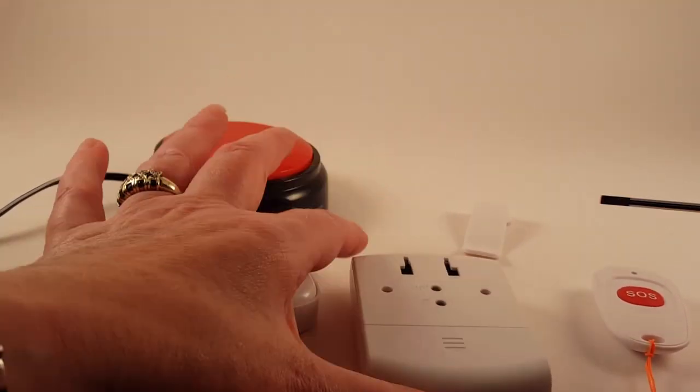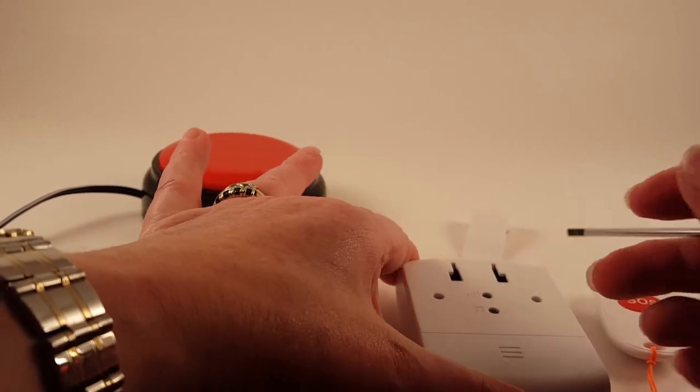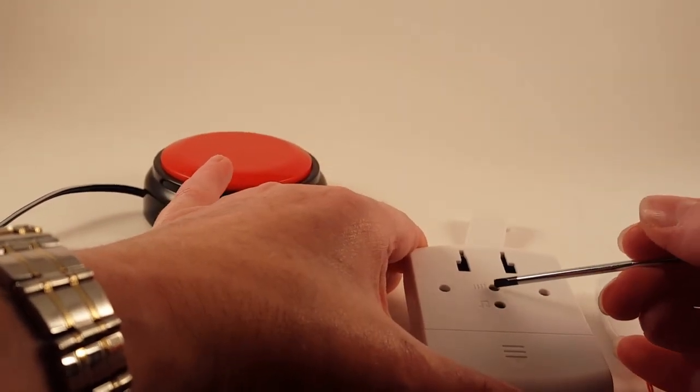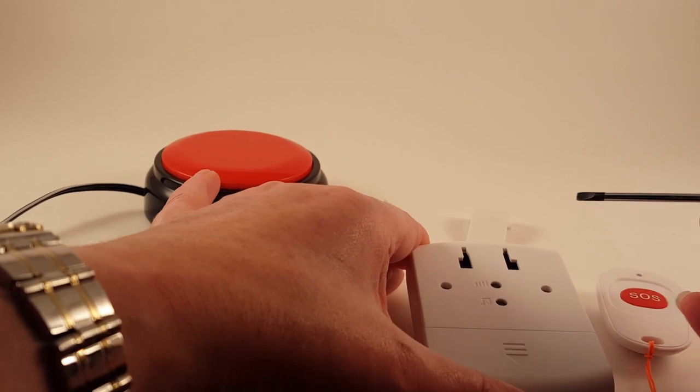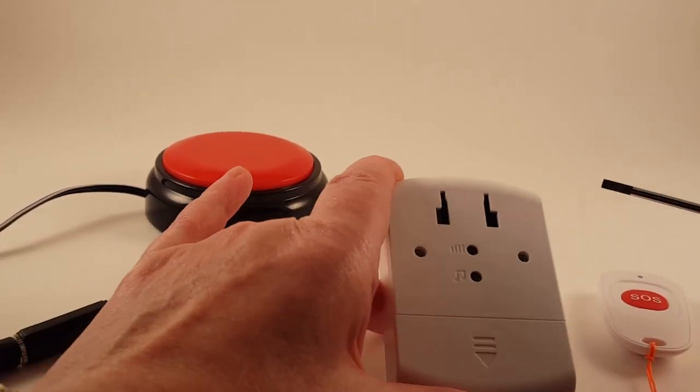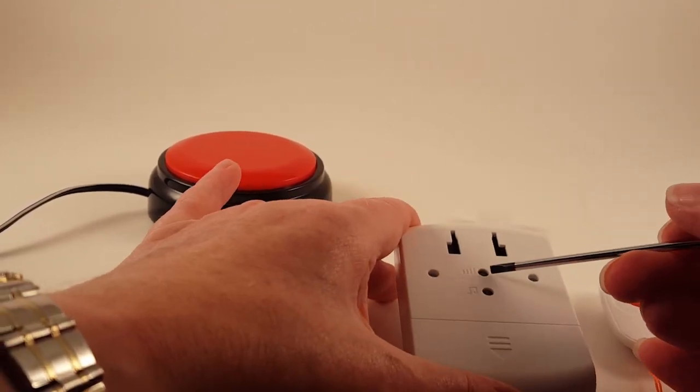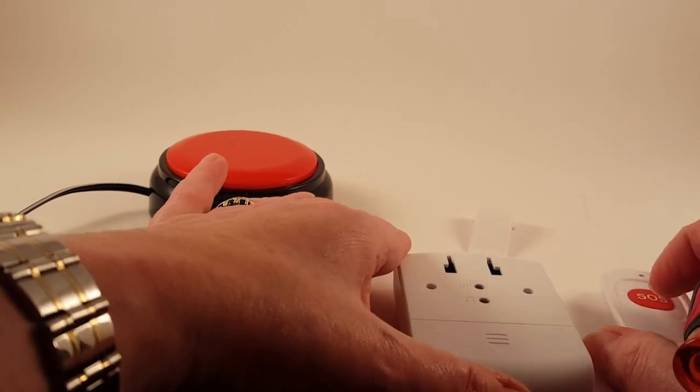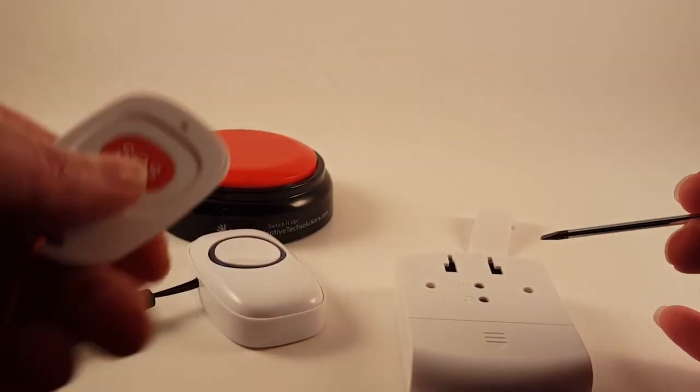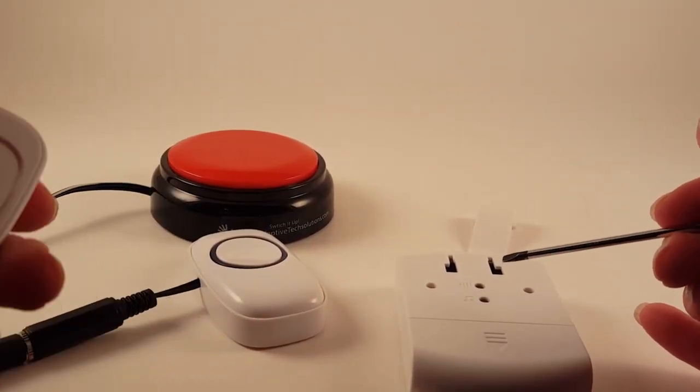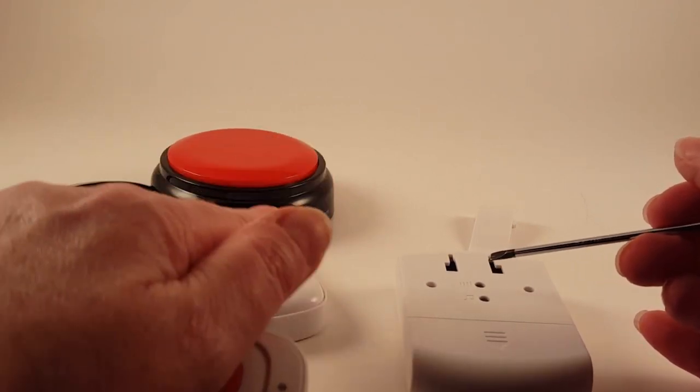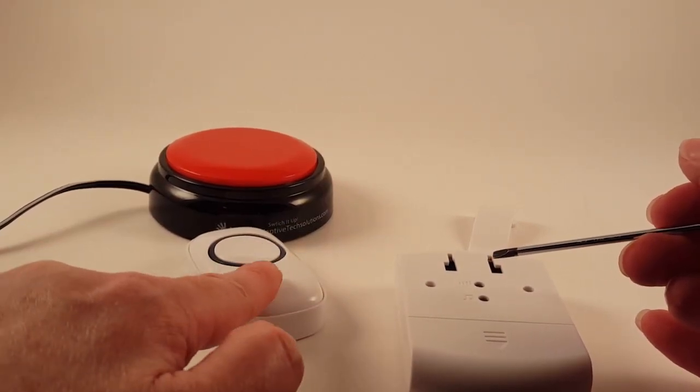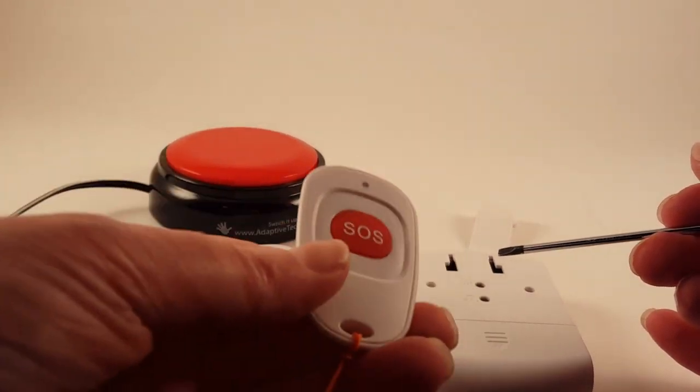So if you're going to assign a chime, let me see what our volume is set on here. I'll turn this up a little bit so that you can hear it. I'll go ahead and push this, and you'll hear that it will start to do the chime, and then it's going to make kind of a little interesting sound. And after it's made that sound, that's when it's telling you it's ready to pair up with either another transmitter or one of the ones that you can wear around your neck.